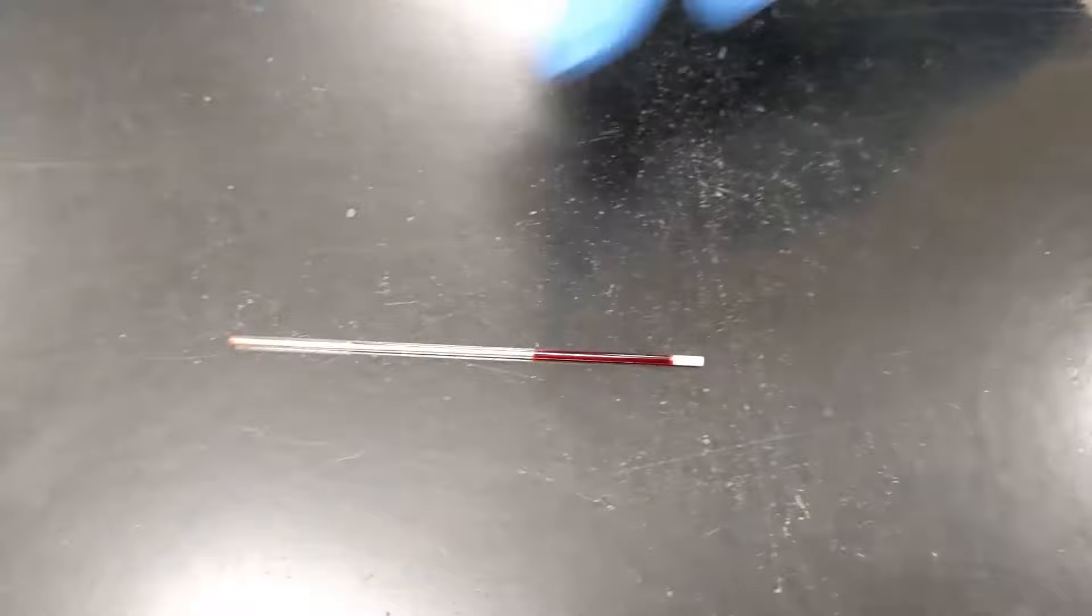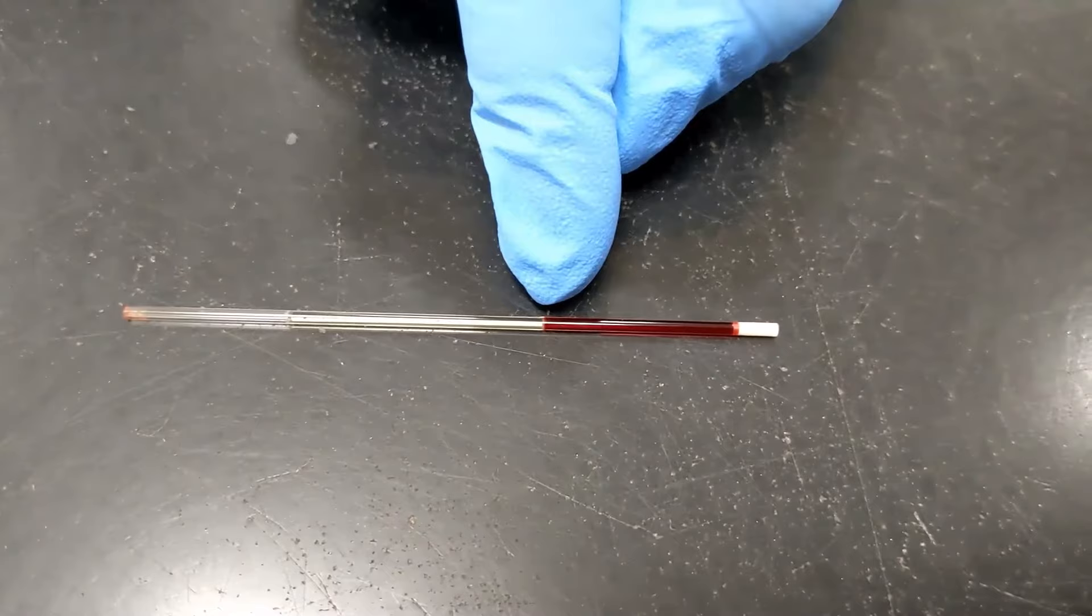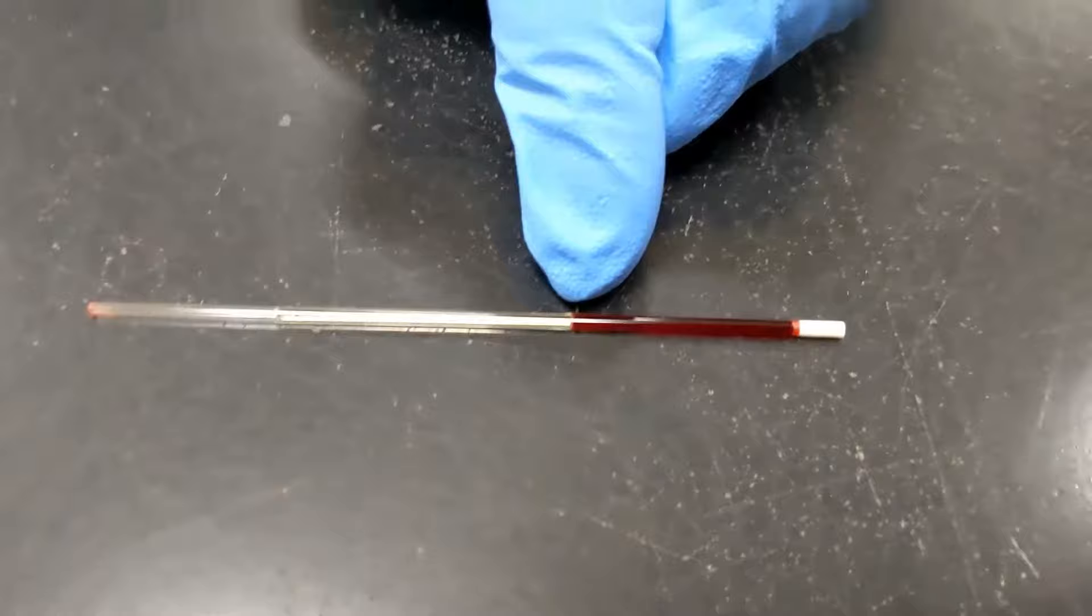Here you can see from the beginning all the way here is the plasma, a little white coat - the buffy coat - barely noticeable. Those are the white blood cells and platelets, and the remaining here is red blood cells.